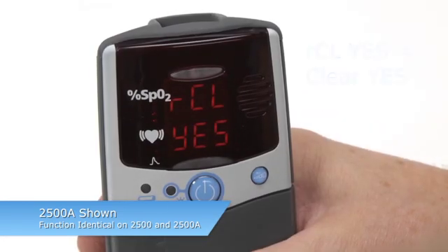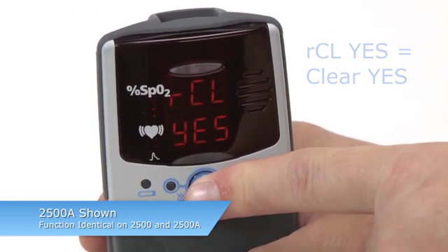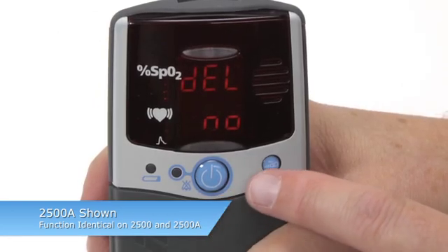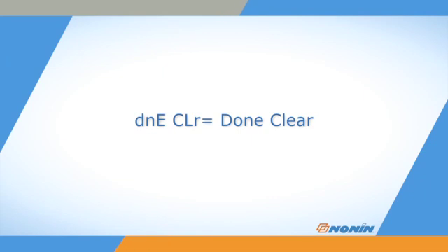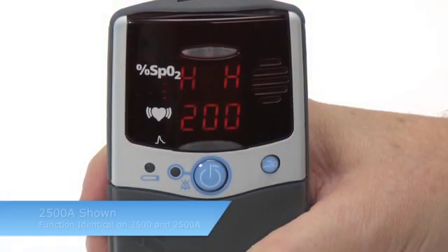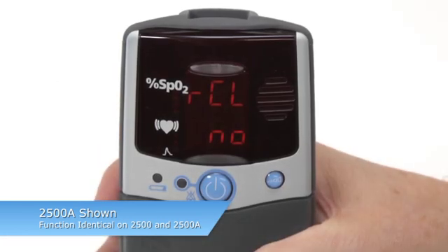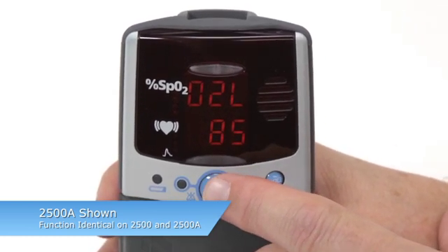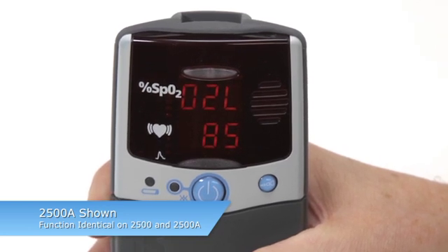To clear memory, press the advance key until you see Clear Yes. Then press the on-off key to perform that memory function. Delete will appear. Confirm that you want to clear by pressing On-Off again. You will automatically exit setup mode. Re-enter setup mode and select Clear No to proceed to the rest of the setup options. If you do not clear memory, you will automatically continue to the rest of the setup options.